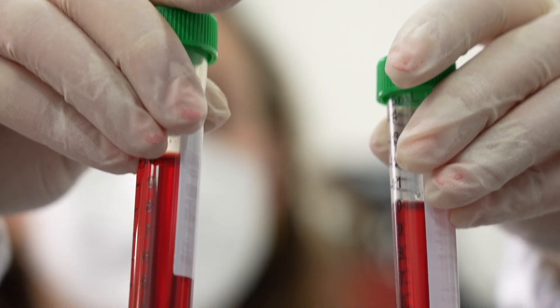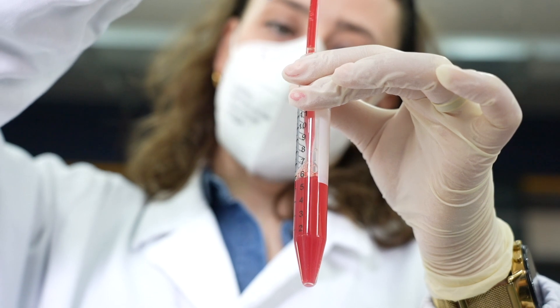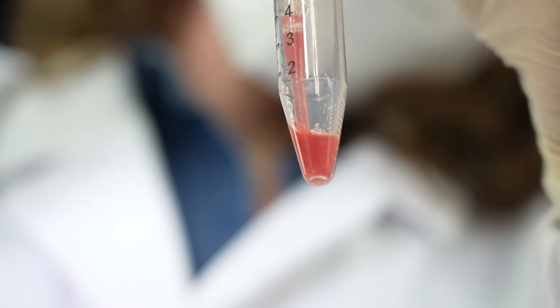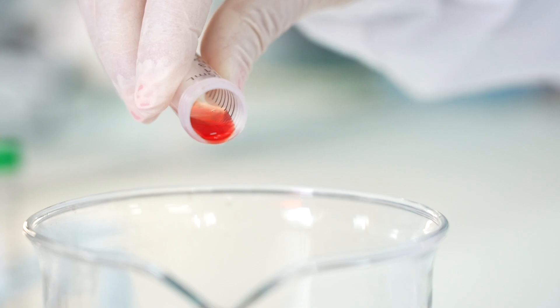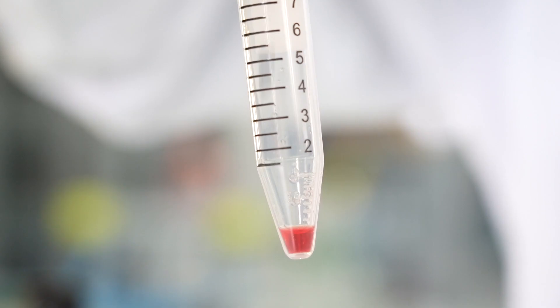Using the transfer pipette, remove the supernatant, leaving only the pellet in the tube. Add an equal volume of methylene blue dye into the pellet. Gently resuspend the pellet into the dye and allow it to stand for approximately 15 minutes to allow the dye to penetrate into any microfilaria present.